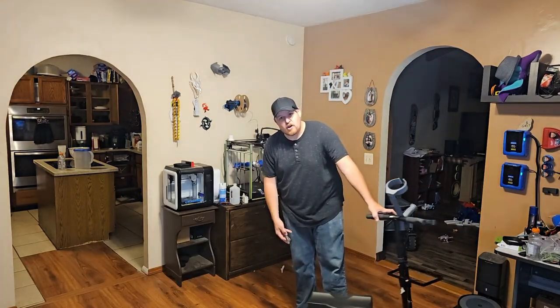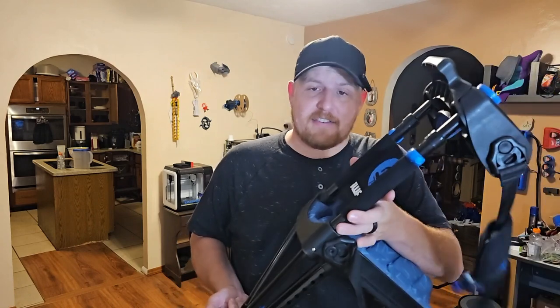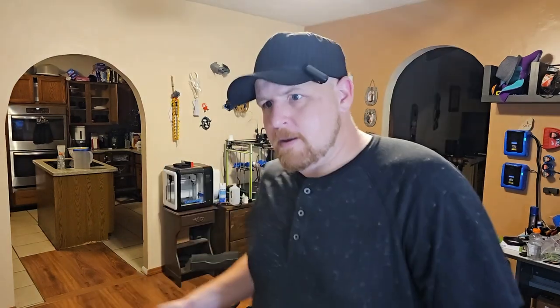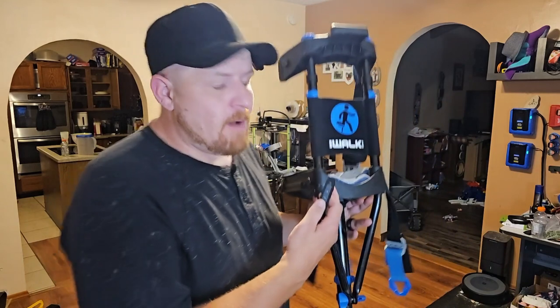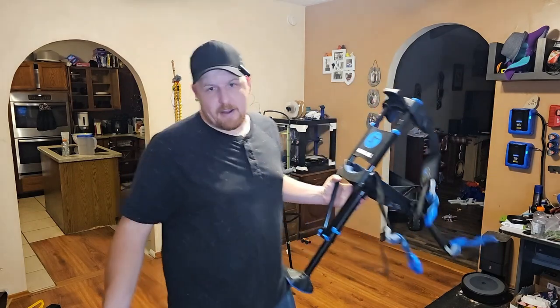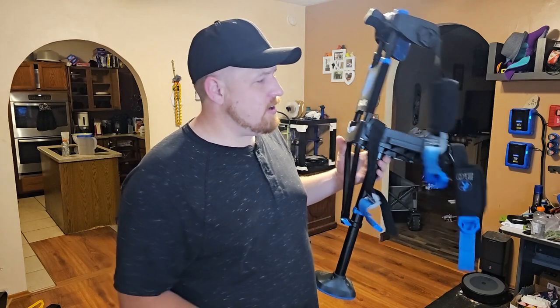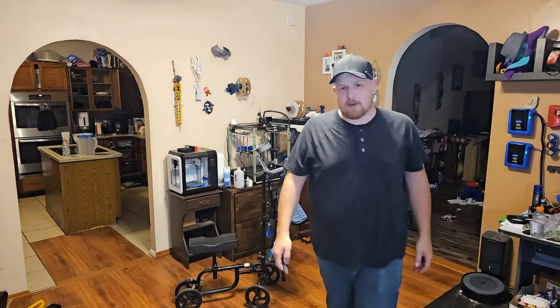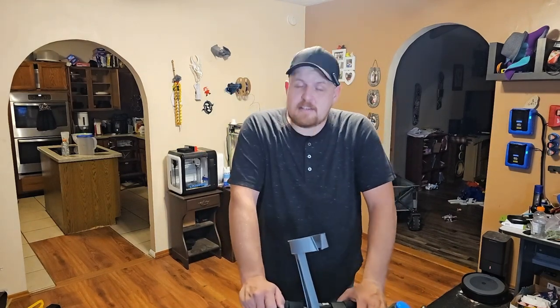What are my final thoughts? Should you get an iWalk or the cart? One big pro of the iWalk is that at the time I bought it, it was around $150–$160 on Amazon — not a big investment. Some insurance plans will cover it, and almost all will cover a cart, assuming a medical professional thinks you need it. I was glad to have both, and if I had to pick one, I honestly don't know if I could. The iWalk is better when you need to go do things and feel less hampered by your disability. But it becomes a burden at home with constant on-and-off. The best approach is to use the iWalk when you need to do things and the cart for everyday convenience — but be exceedingly careful on the cart because it is dangerous and top-heavy.